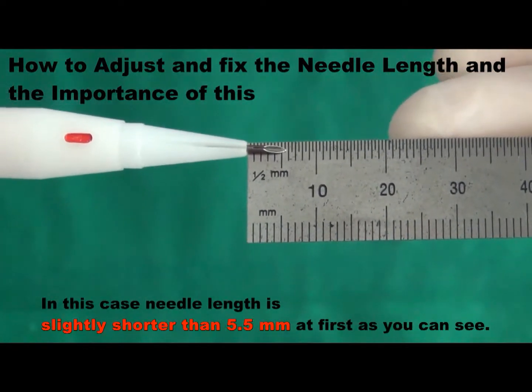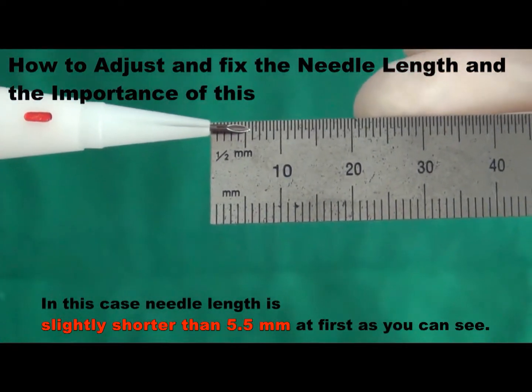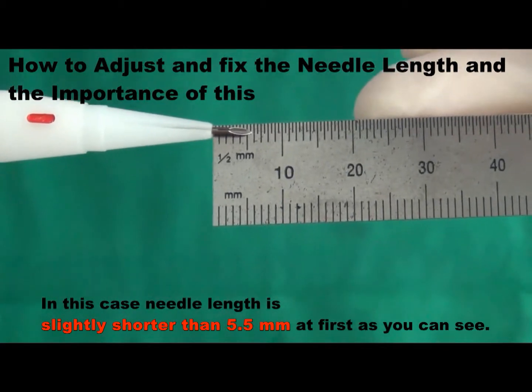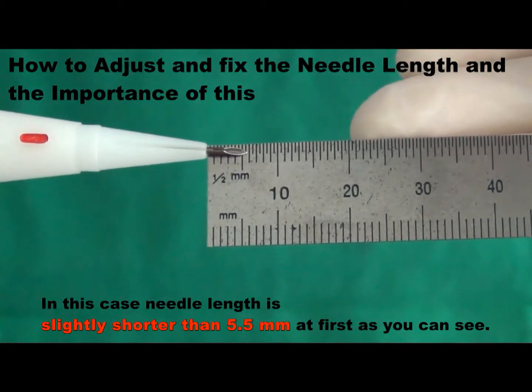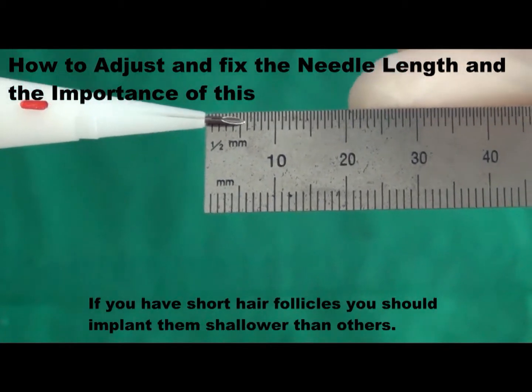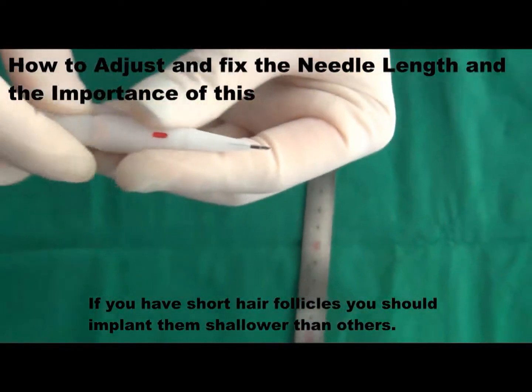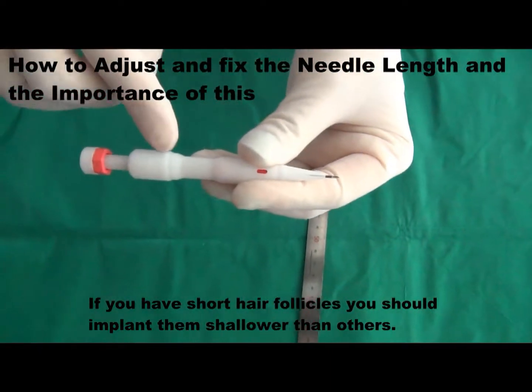In this case, needle length is slightly shorter than 5.5 mm at first, as you can see. If you have short hair follicles, you should implant them shallower than others.